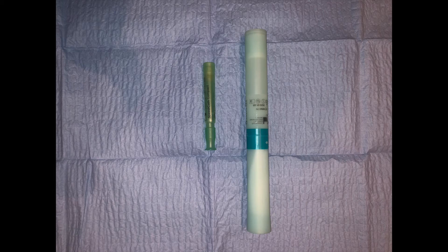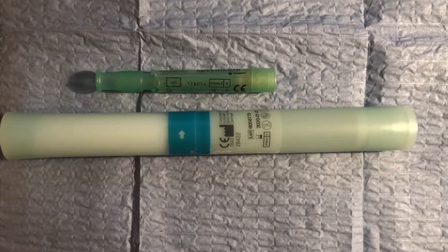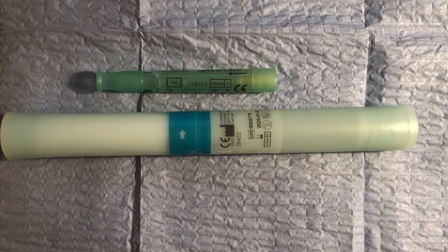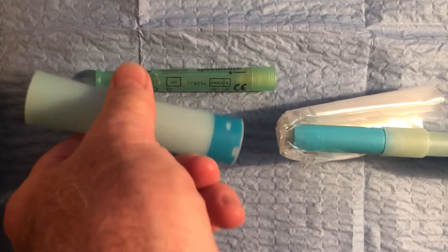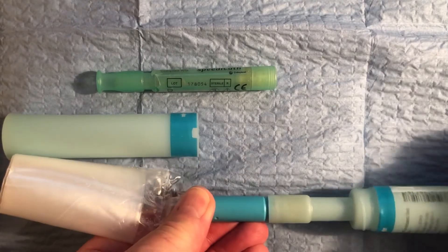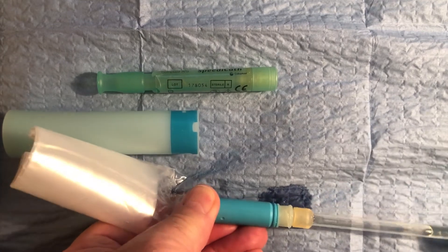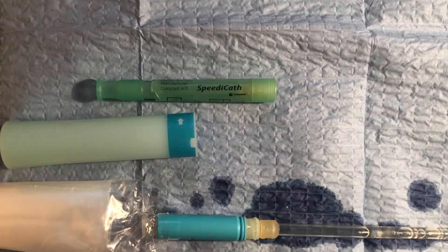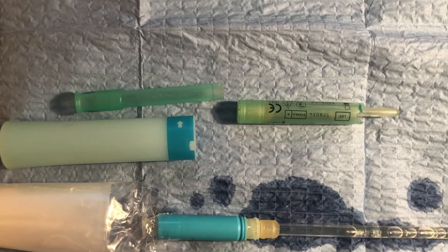These are portable versions of self-catheters — female on the left, male on the right. Removal of the male catheter from its container is simple: the container is unscrewed and the bag pulled out, which is then unfolded. The catheter, which is pre-lubricated, is unscrewed from the container and the container withdrawn over the top. The female catheter is very simple — it is simply unscrewed and withdrawn. There is a small filter. The lady inserts the catheter, drains it down the toilet, then removes it.